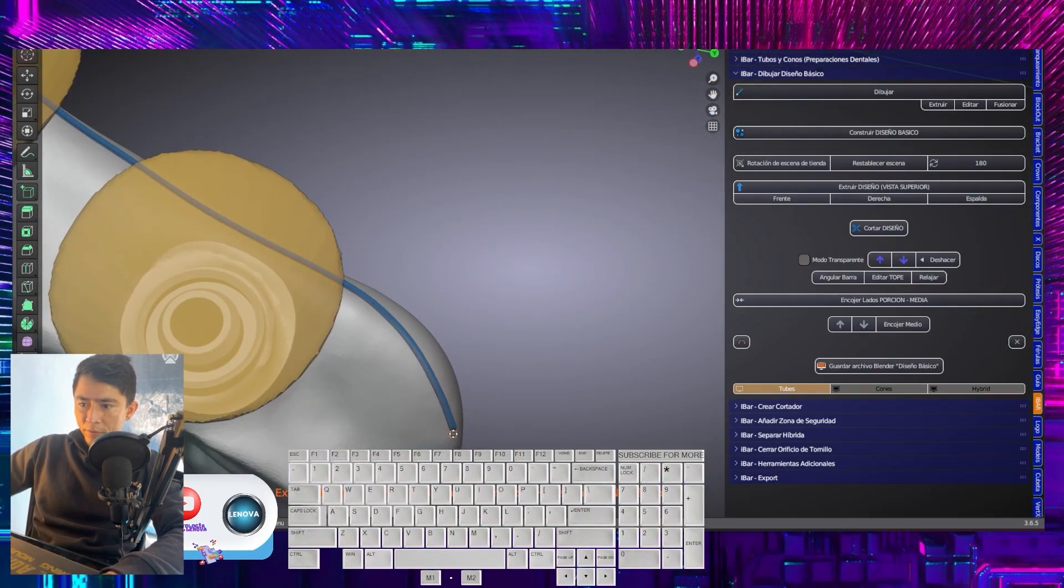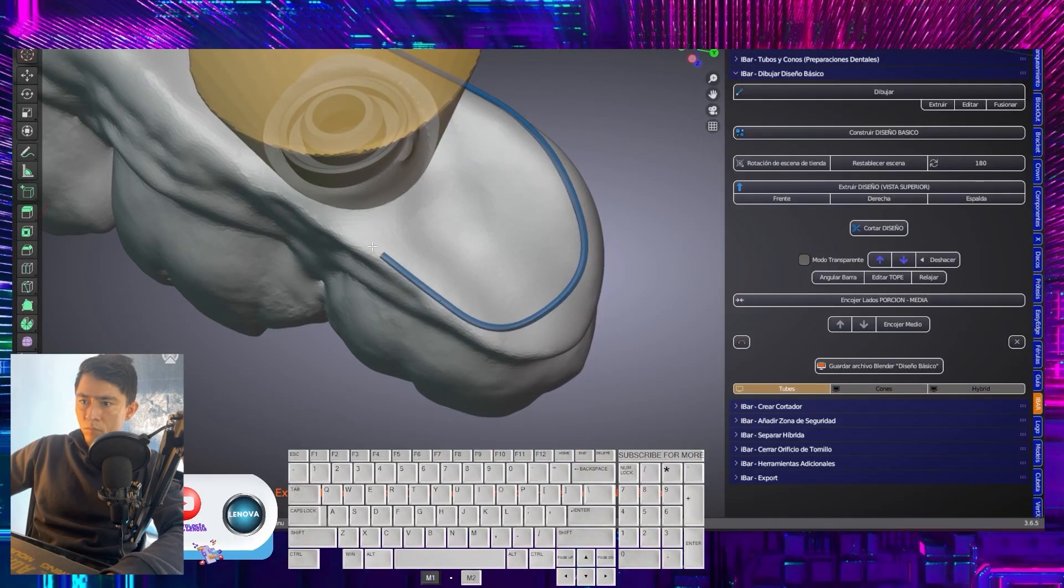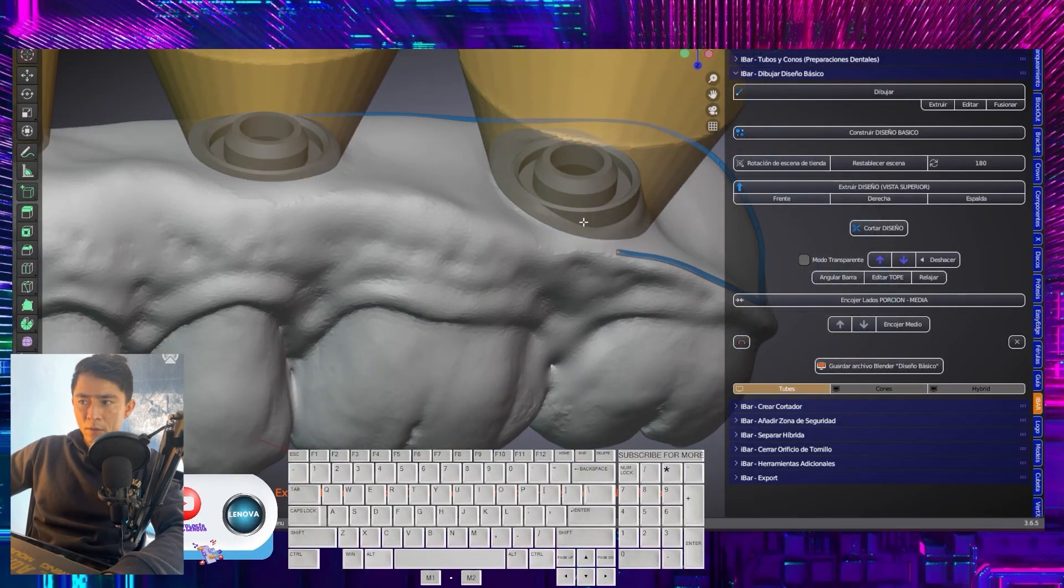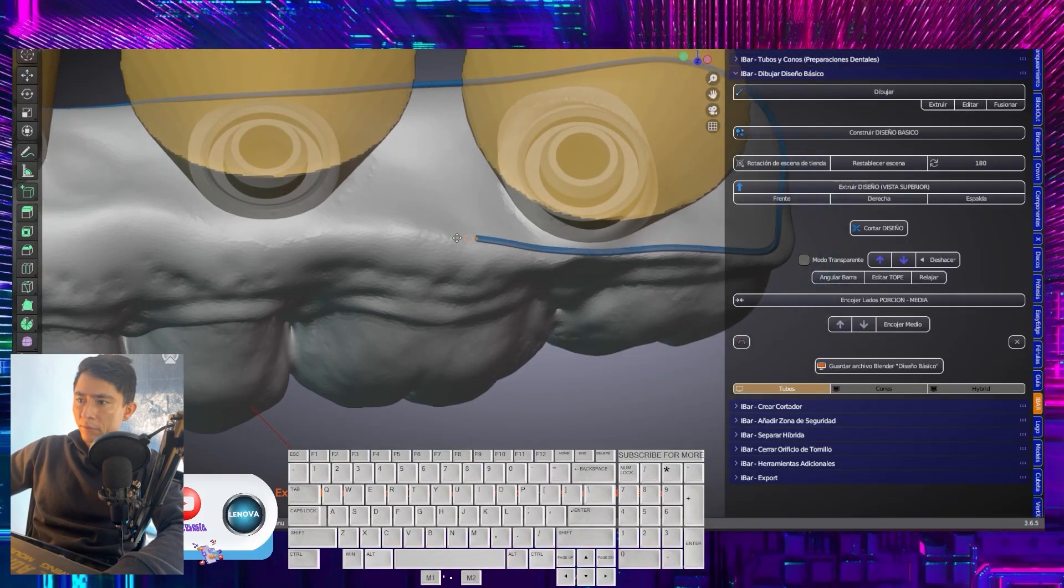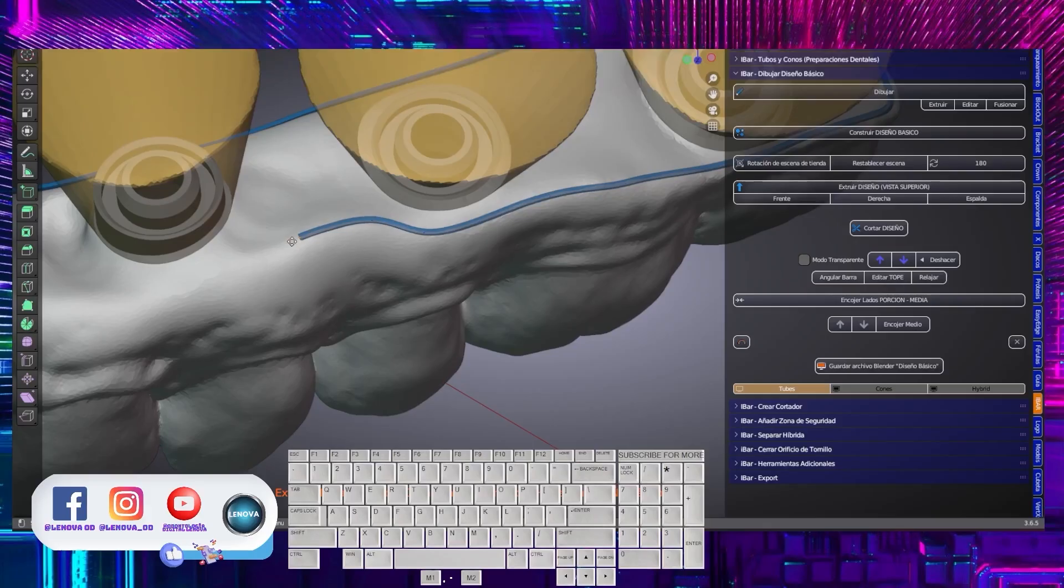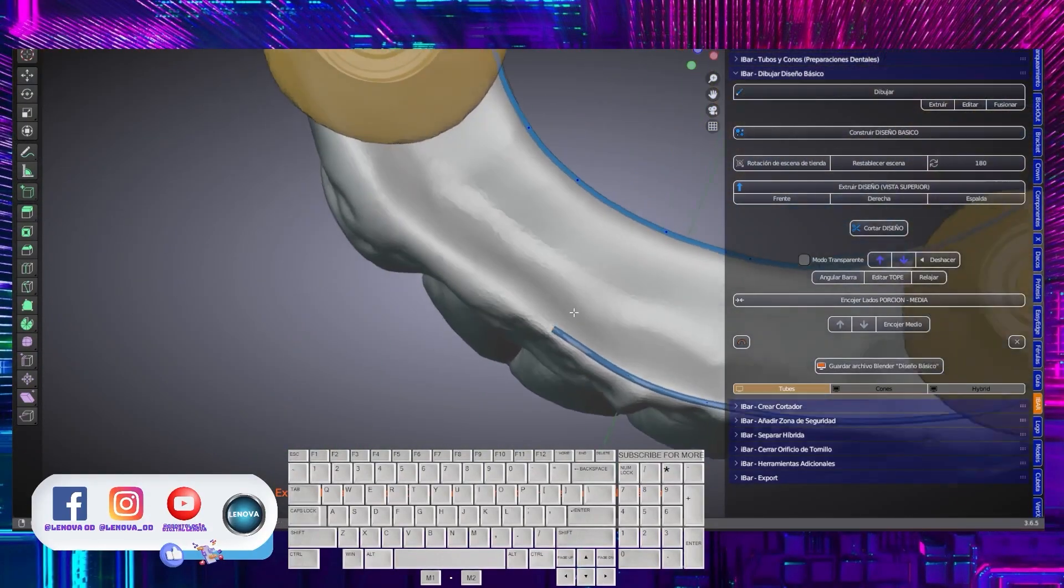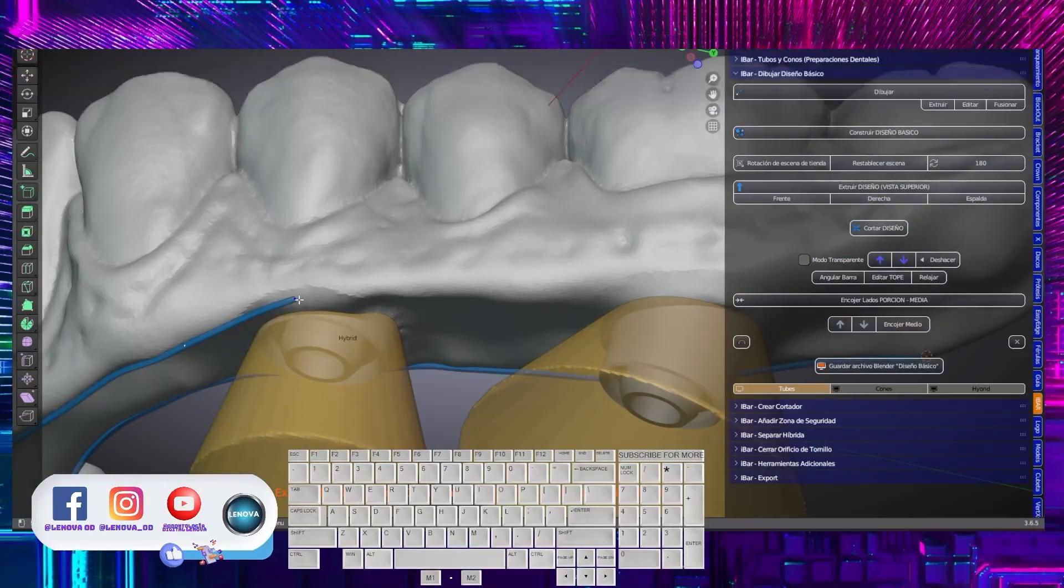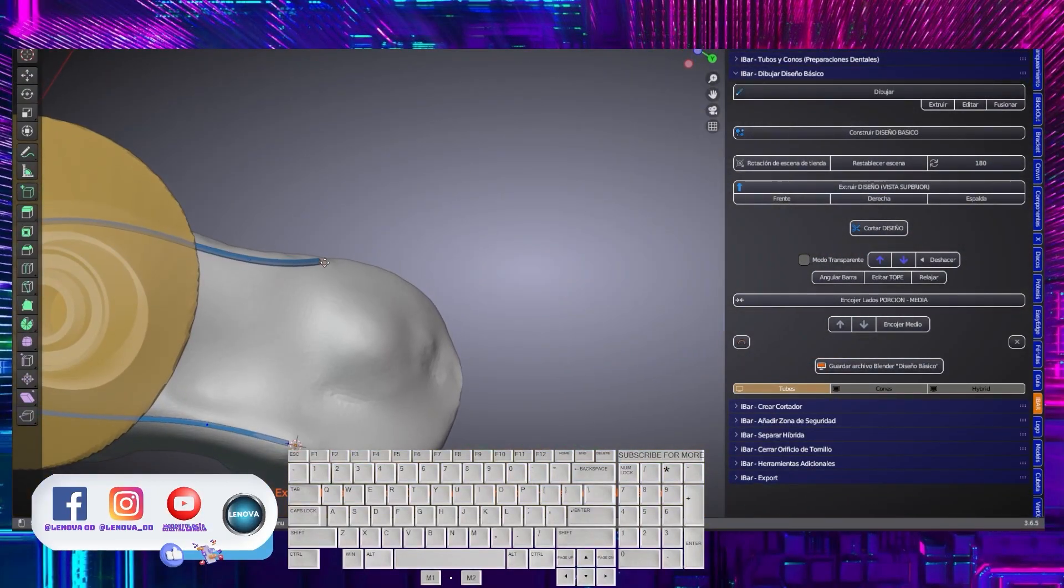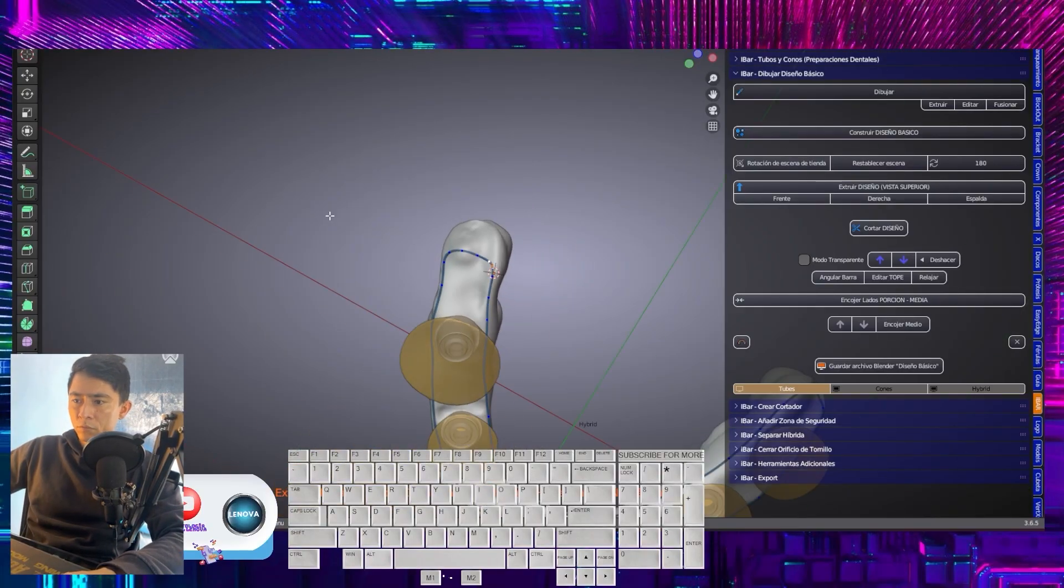Here I start making the curve. And through this area, I am going to go along the entire external side of the prosthesis. We fuse our two ends.